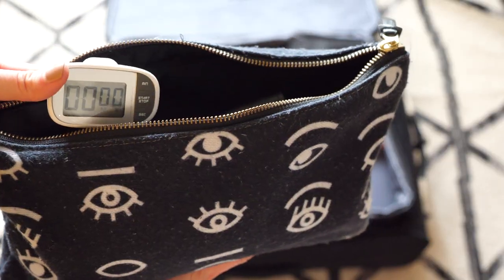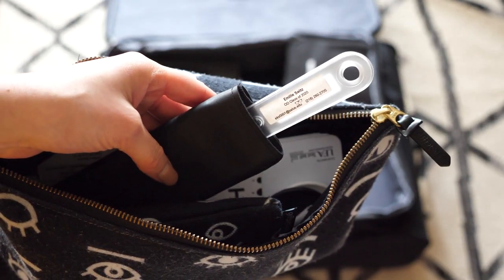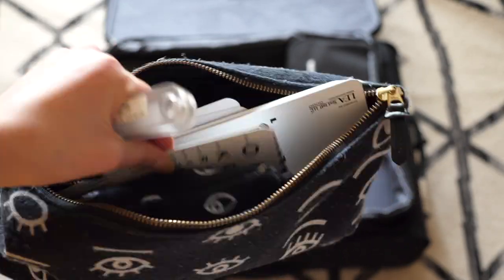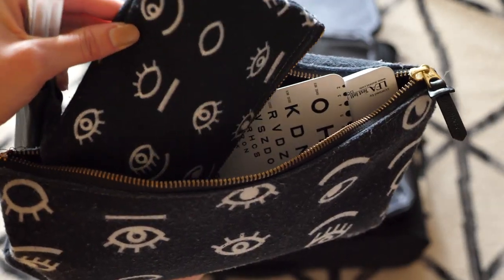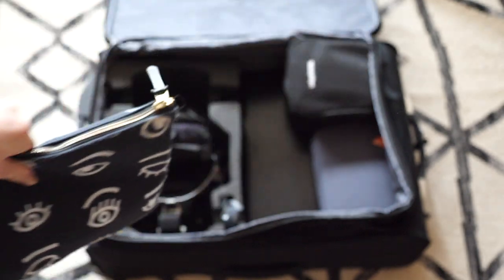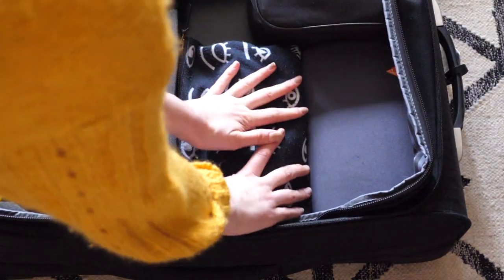The next item is what I get asked about by far the most on my Instagram — it's my Society6 carrying pouches. Large, medium, and small. The large one has things like my Ret Rack, my Lea symbols, and my near card. The small one has things like fixation sticks and my tono tip. It fits really nicely. I ended up using the medium one as a pencil pouch, and I'll link that below so you guys can take a look and get whatever eye print you're interested in.